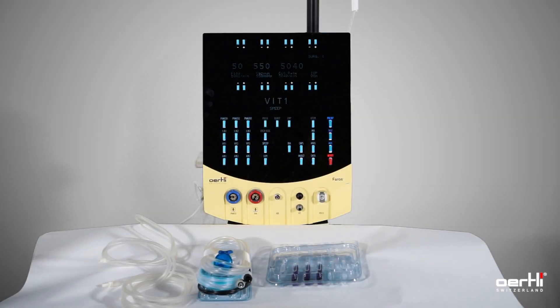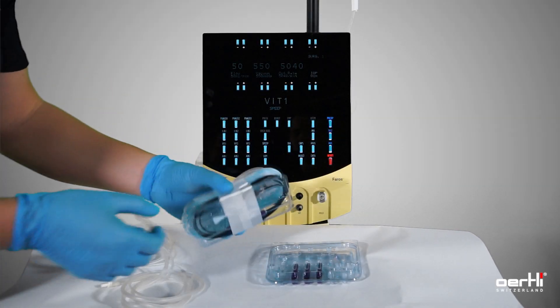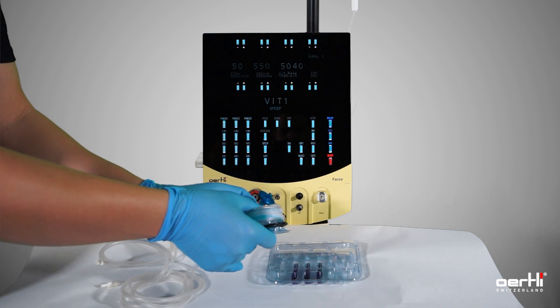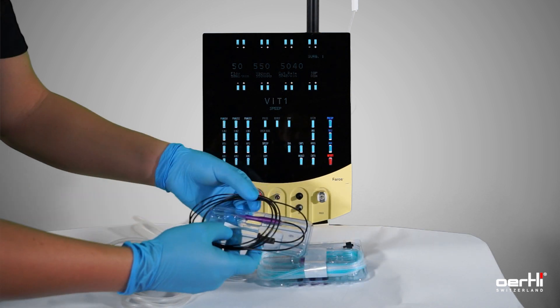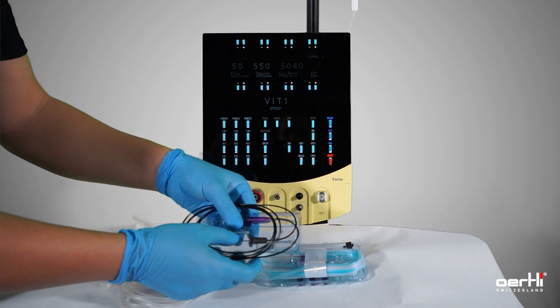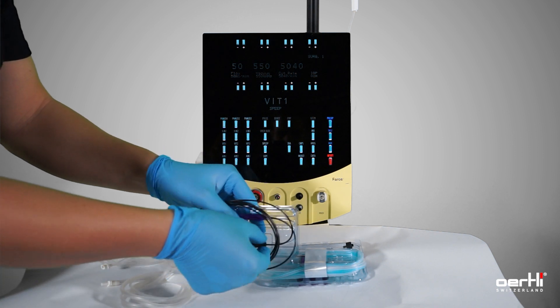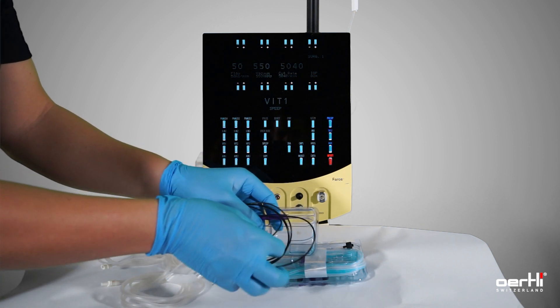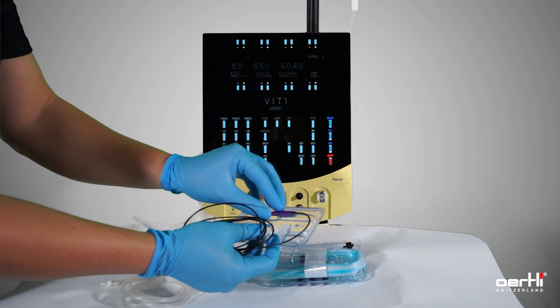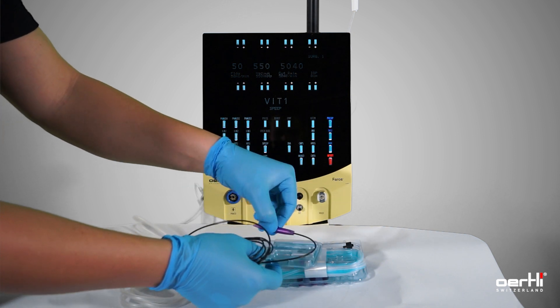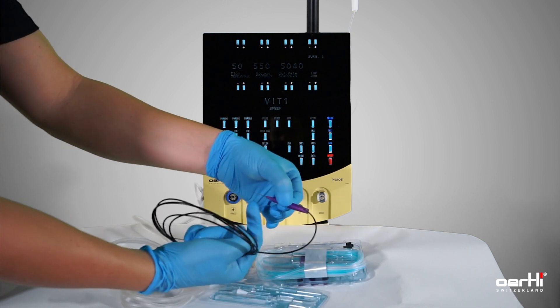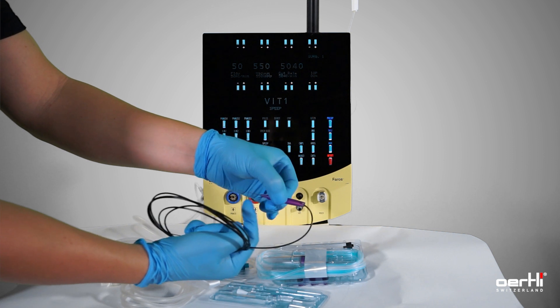Let's go ahead with the light instrument. Remove the wrap and take out the connector, and then the hand piece. Be careful. Avoid any damages or bendings on that part here.